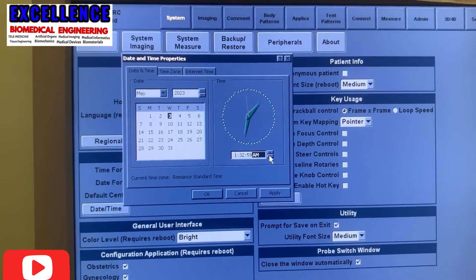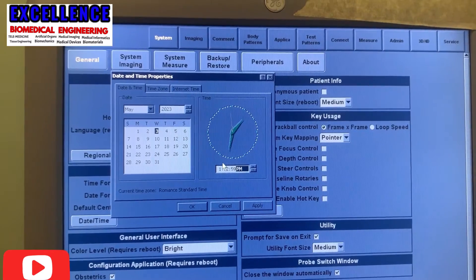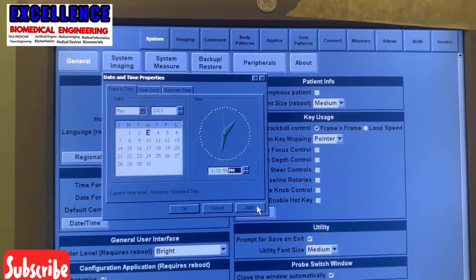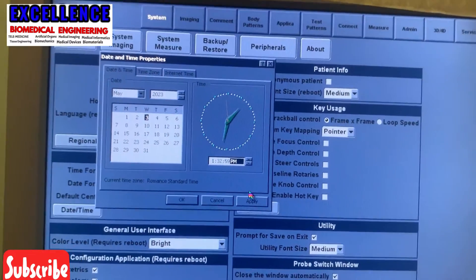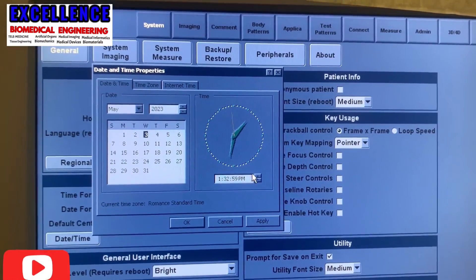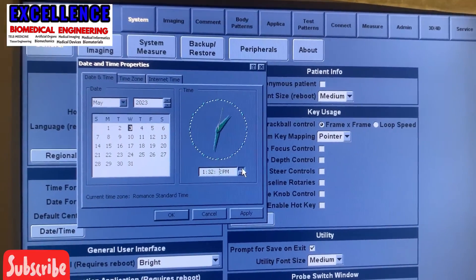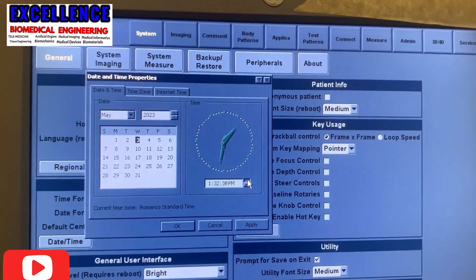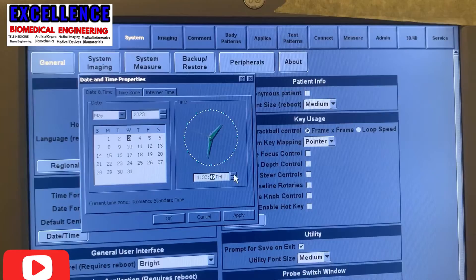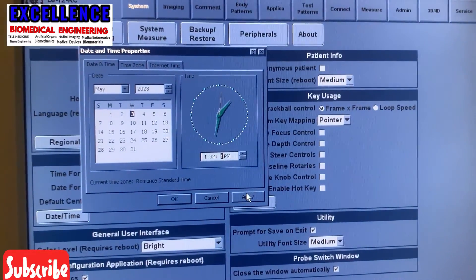Most often, after every reset — whenever you reset the CPU or change the CMOS battery — that's when you need to do this time and date setting. If you notice that every time you turn it on you have to reset the time, quickly go and check your CMOS battery. It is most probably faulty or drained, and you'll need to replace it.